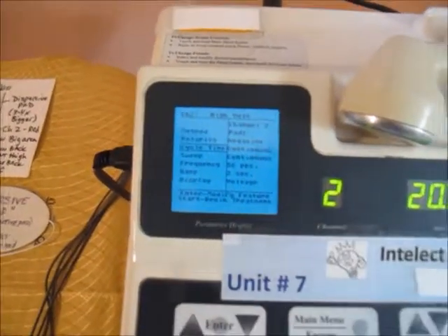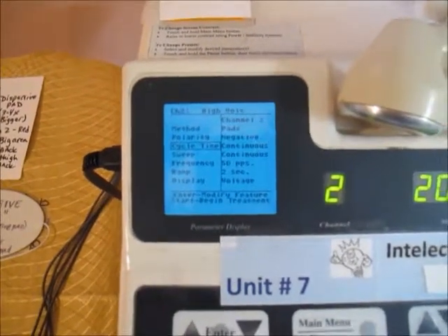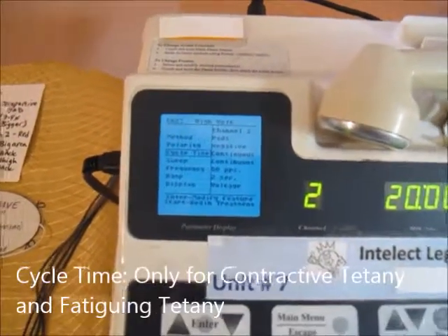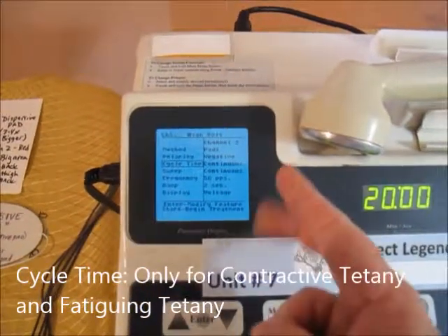Now cycle time, we don't always use it. Cycle time means there's an on-off phase. It contracts for a bit and then it goes off. The only 2 modalities of the 4 frequencies of the motor nerve stim that need a cycle time are going to be 1, the contractive, and 2, the fatiguing.